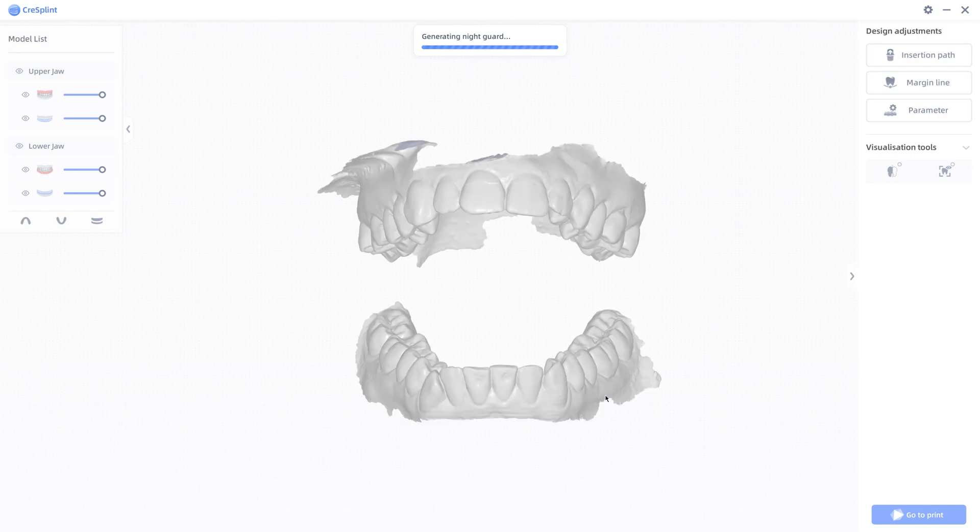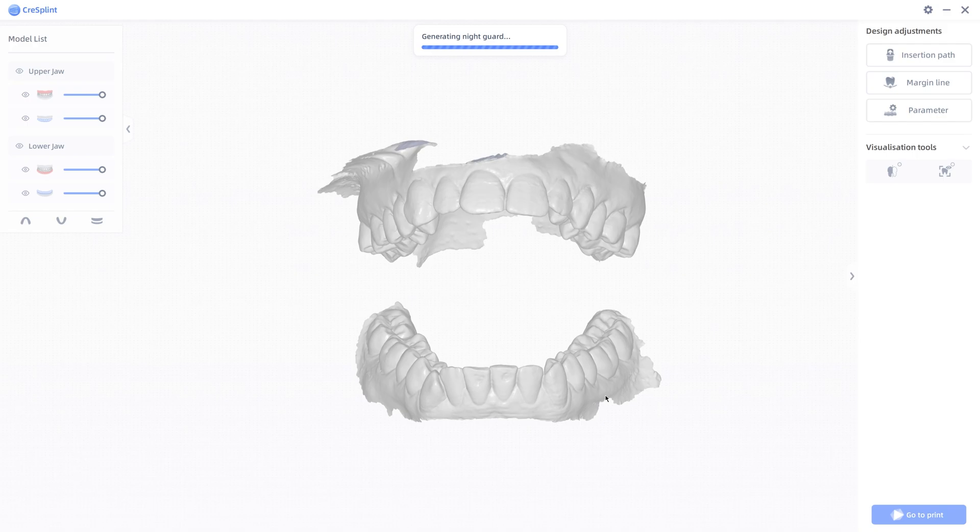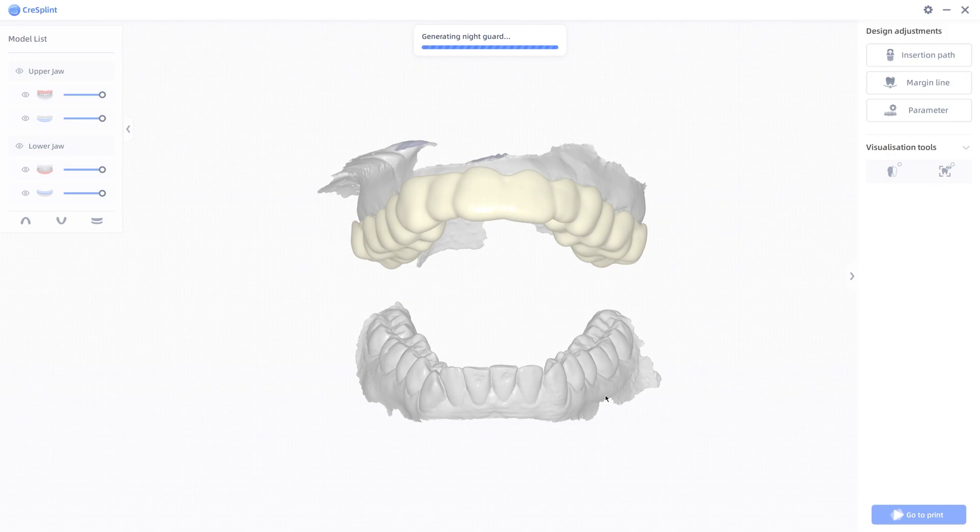Basically, the speed is highly connected to the speed of your individual computer system that you're running this on, specifically the graphics card. Their built-in tool here is really awesome. Basically does everything for you. And if you have your printer software installed on your scanner computer, it'll also just send it right off to the printer, which is super handy.